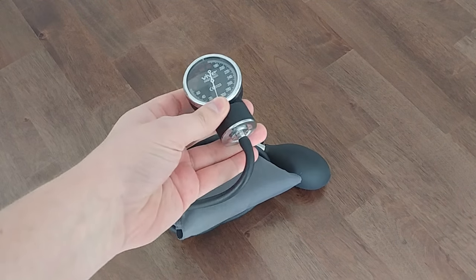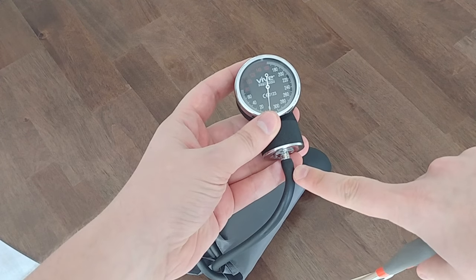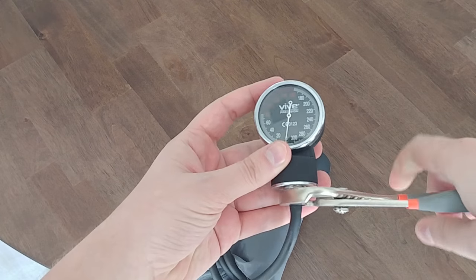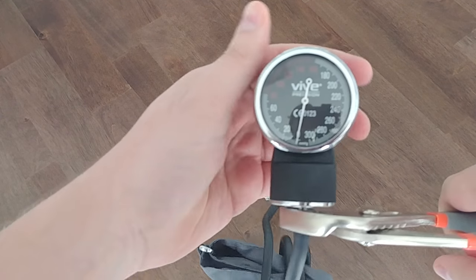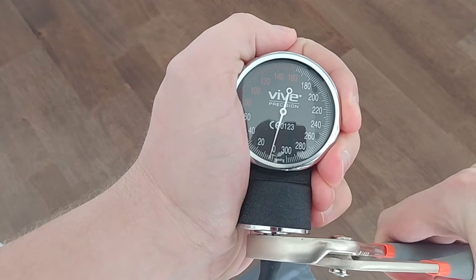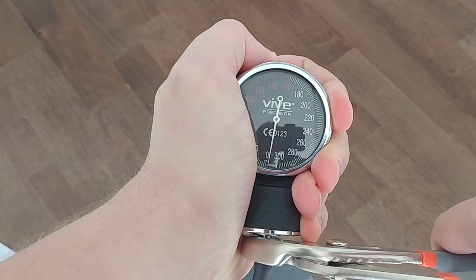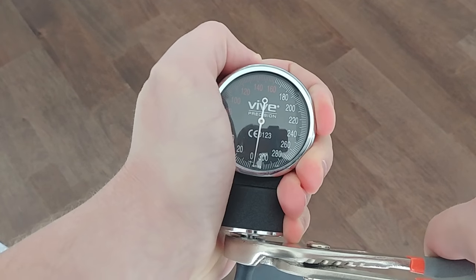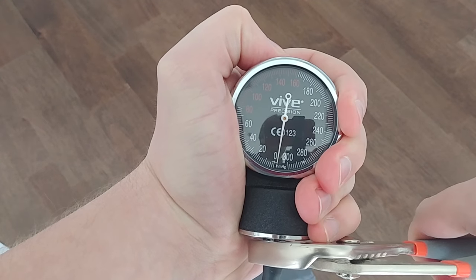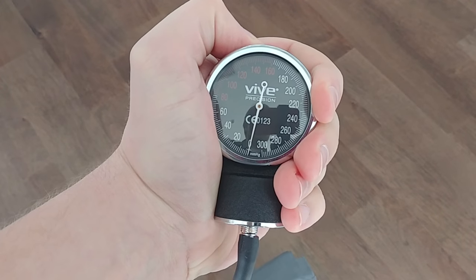All you'll need to do — you can do this with the hose on or without, I'll do it on there just to show that you can — grab that there and bring this a little closer in. Twisting it will move that needle back and forth. If you see a gauge that's off, just give it a twist until it's right back to zero.